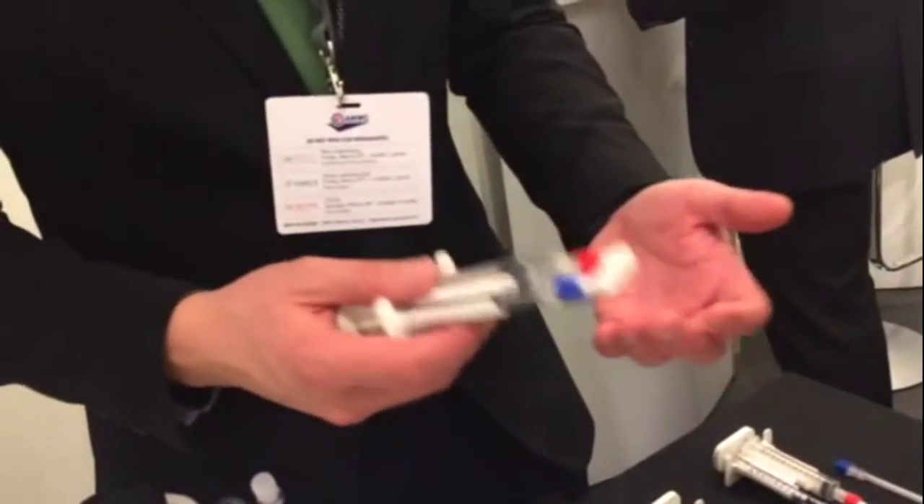For example, if you treat wounds, burns, or chronic wounds, you can load this syringe with the PRP and this syringe with the thrombin, and then you can spray the PRP onto the wound and it becomes a gel. So it stays at the wound — if you just use the liquid PRP, it falls off.